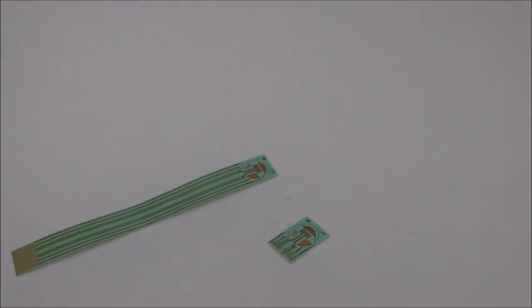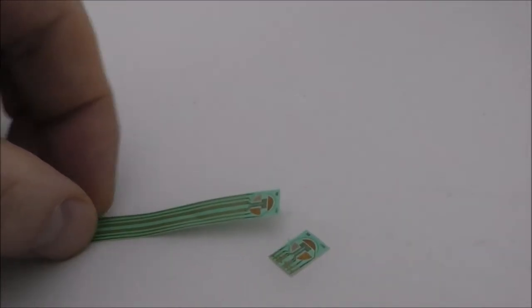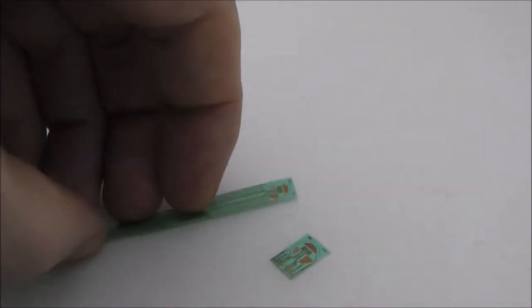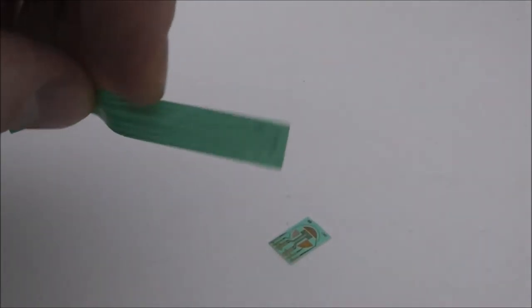Hi. Flex circuits, or flexible substrates, offer a very interesting platform for people who are interested in making wearable biosensors. So I've got a couple of examples here. They're obviously extremely flexible.